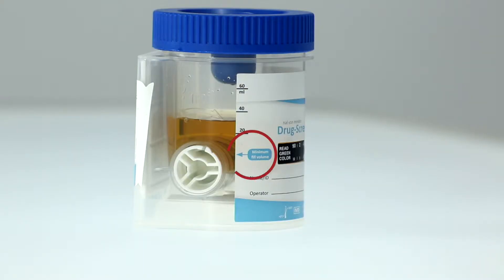The minimum fill volume is also marked on the test, but readings are most reliable when the sample volume exceeds 20 millilitres.